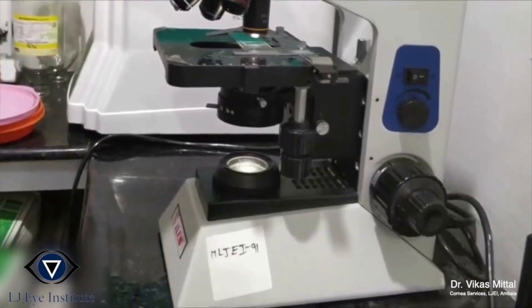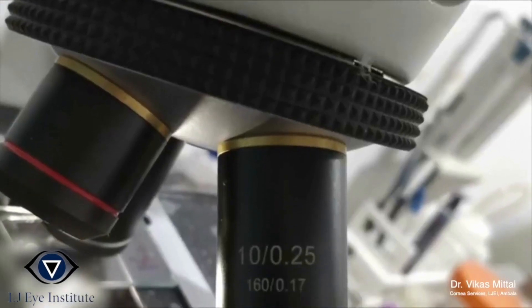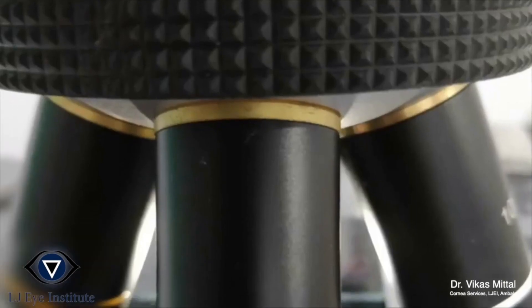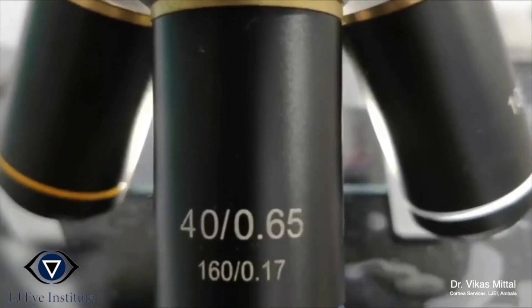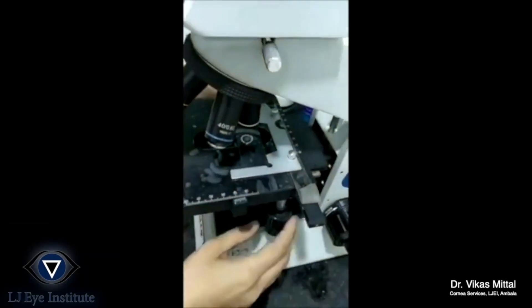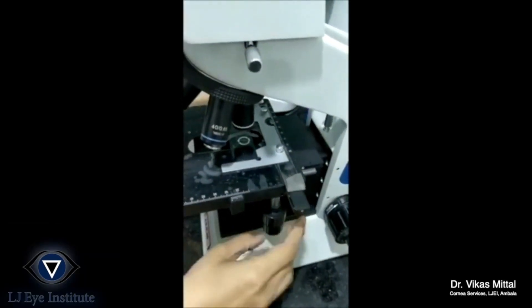First, the 10x lens is used for focusing the field, and then the magnification is increased to 40x. The slide is adjusted on the microscope as shown.